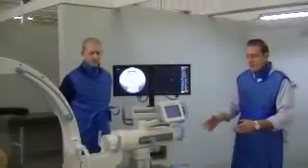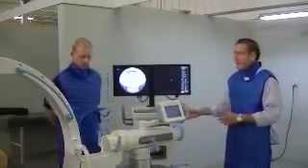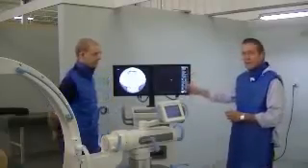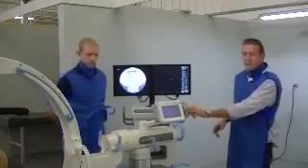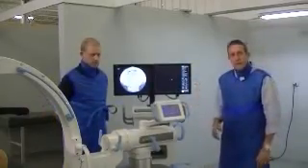This is the Zen 7000. We're going to take you through it from start to finish. We're going to start off with patient data and show you how to do that, then show you some of the touch screen display on the C-arm, and then take you through all the movements and the images.